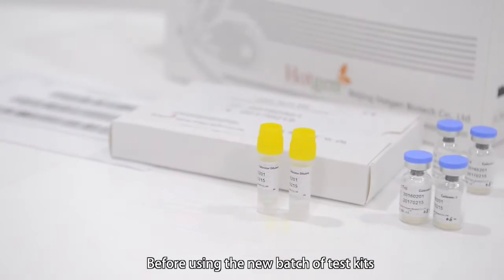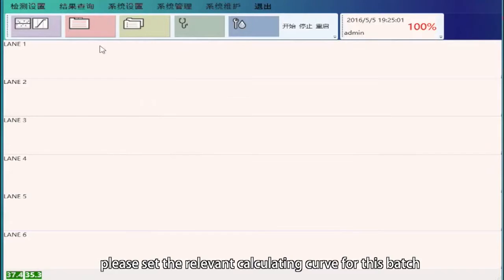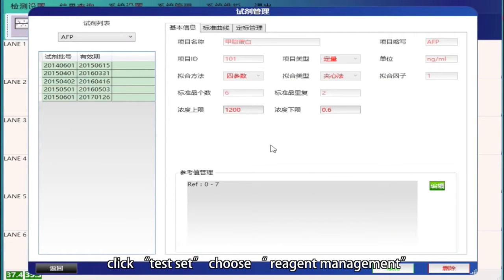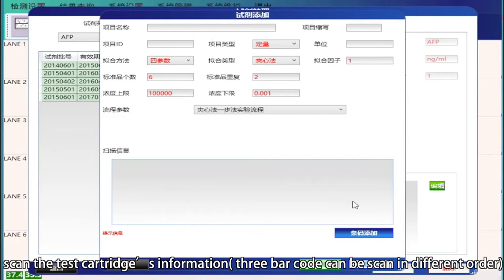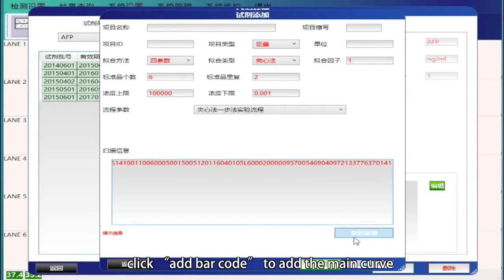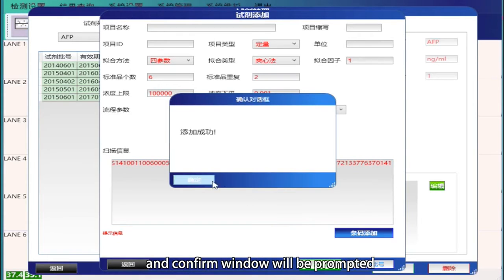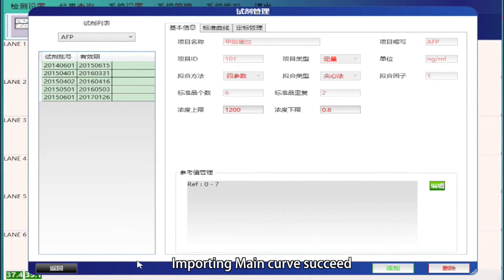Before using a new batch of test kits, please set the relevant calculating curve for this batch. To import the main curve, click Test Set, choose Reagent Management, and click Add on the bottom right. Scan the test cartridge information — three barcodes can be scanned in different order. When finished scanning, click Add Barcode to add the main curve. A confirmation window will be prompted; click OK. Importing main curve succeeded.